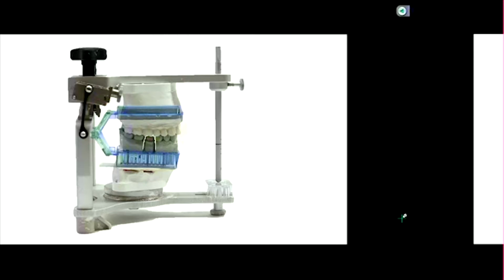setup, except now we have it in a triple tray. I know you guys haven't seen triple trays yet, but you have made them. Remember we said it captures three things: number one, the opposing arch. Number two is the prepped arch, which includes the prep and the adjacent teeth. And number three is the jaw relation record. But look at where the hinge is. The hinge is not representative of the patient's anatomy. It's much different, right? So that is the arc of closure or movement on a triple tray.